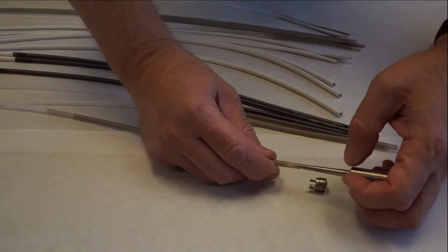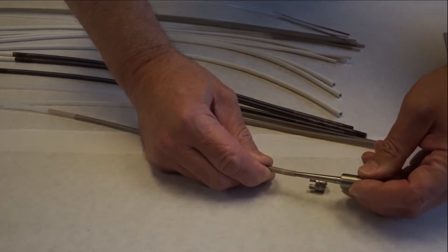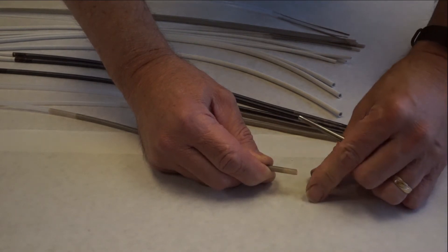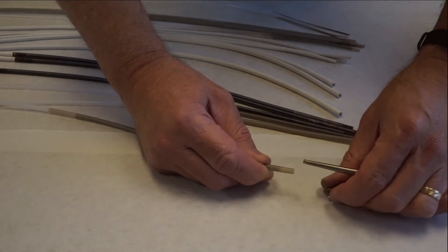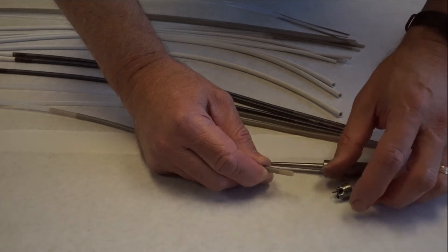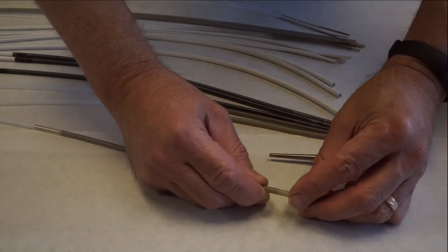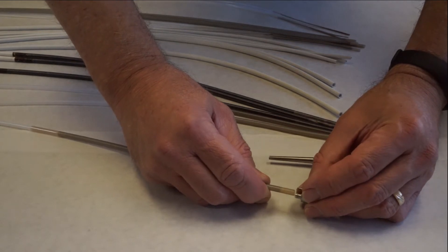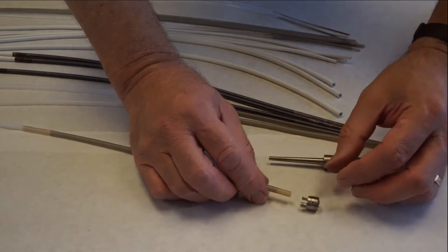To install this channel, the proximal end is mechanically bonded with a compression fitting and the distal end is flared either mechanically or with heat. It is then tetra-etched and epoxies are applied on the biopsy channel fitting on the distal tip. The channel is then slid over the fitting and then it is tied down with a high strength line.